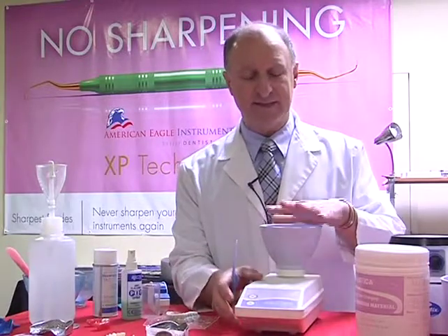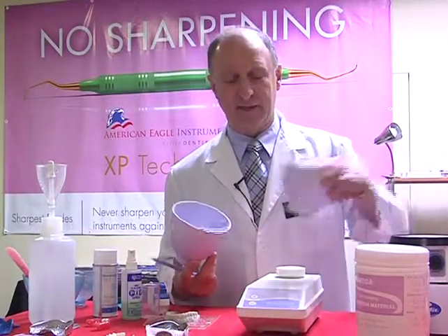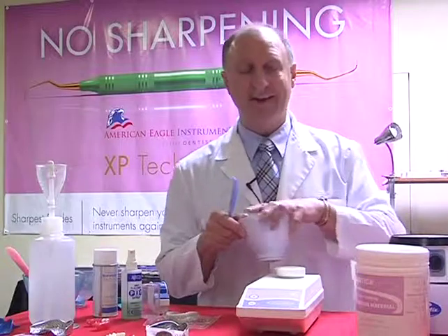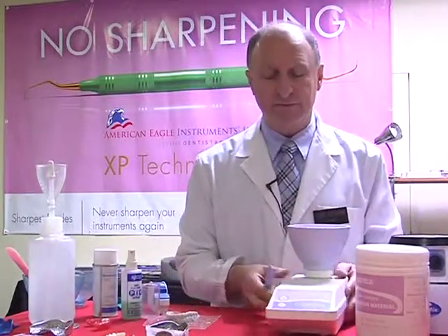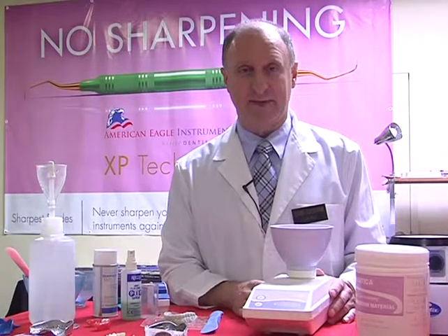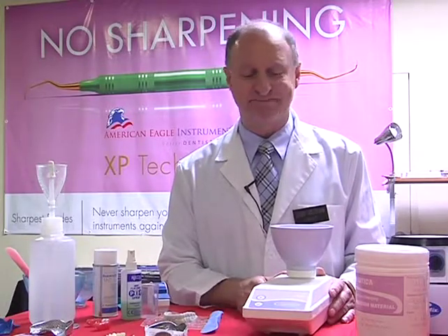You also notice that there's the alginate bowl and there's a larger bowl. The bowls add and detach quite easily with like a bayonet fitting. So it's possible to, again, mix up stone, which we'll show a little bit later on in this procedure. So let's show you how to mix the alginate using the alginator. Now this is especially good if we're doing a lot of mixes in a busy office where we're taking a lot of impressions, whether it be for impression trays, obviously for bleaching trays, mouth guards, or it could be many other things.